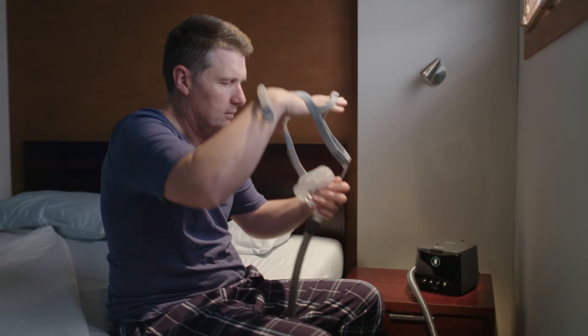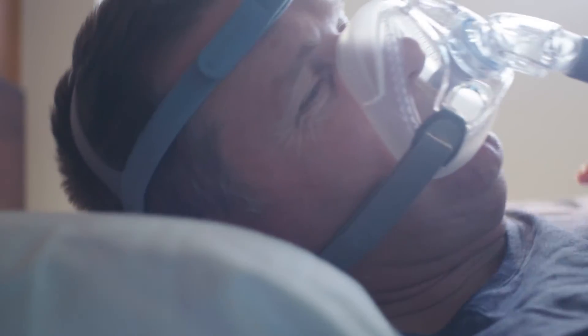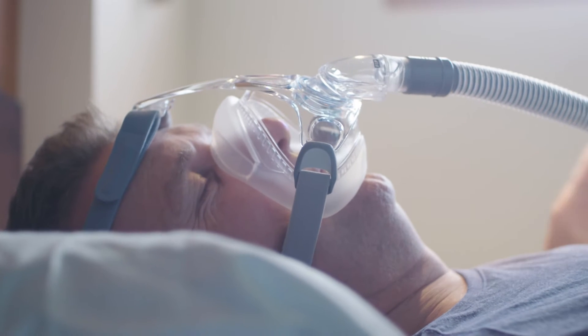The number one pain point is discomfort. We're giving people a mask to wear in a place of zen and bedroom environments, so comfort is key, and that to me is where Viterra stands out.